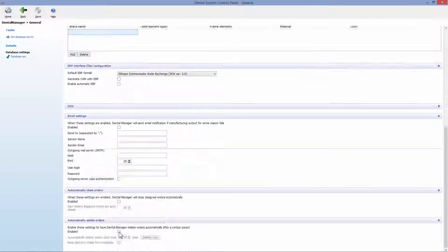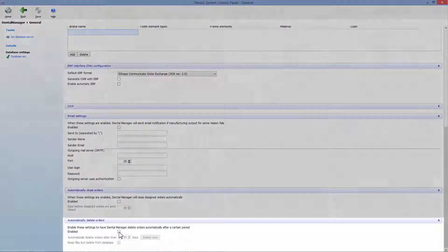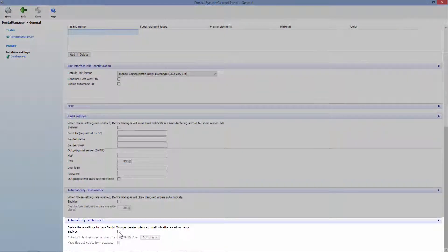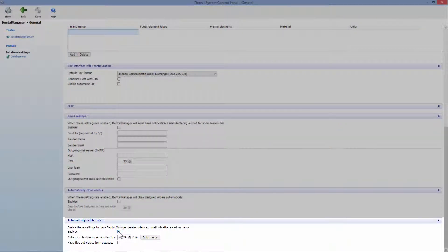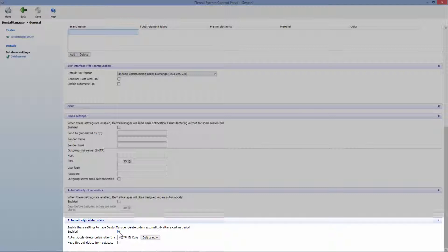Scroll down the mouse and in the automatically delete orders tab, select automatic deletion and choose the appropriate period. You'll also have the possibility to save orders on your local disk if necessary.